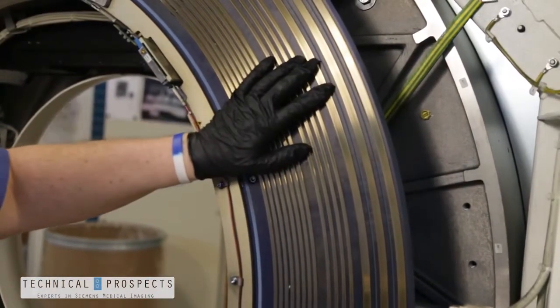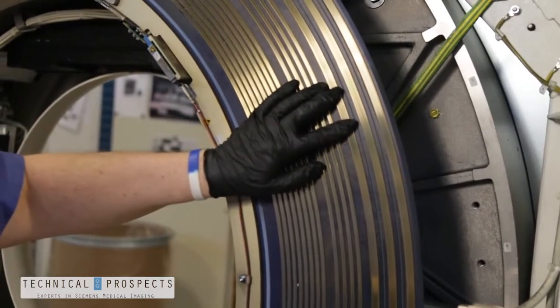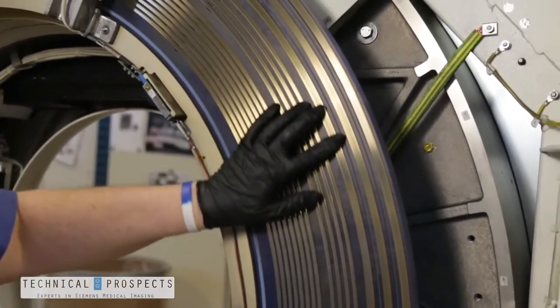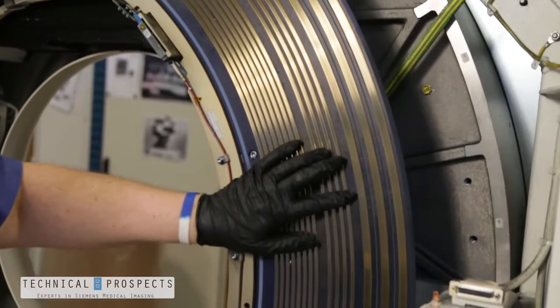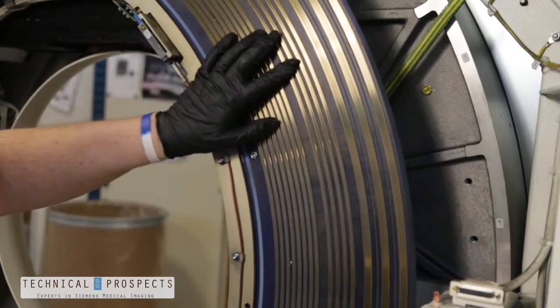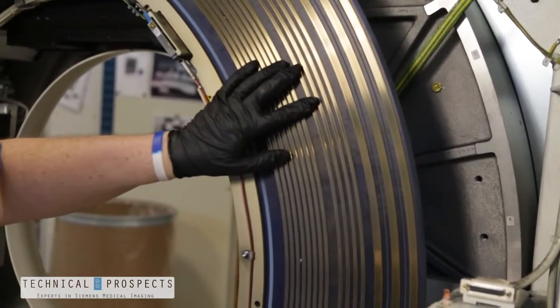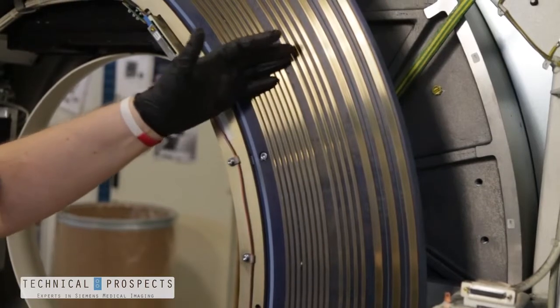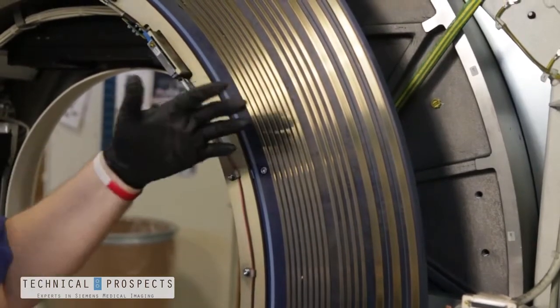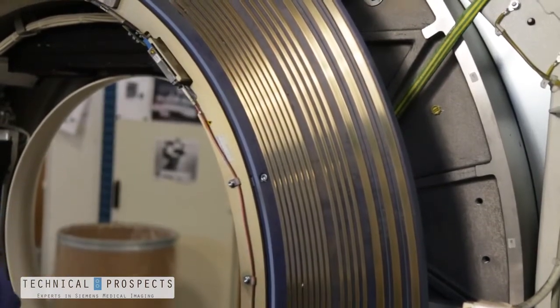Imperfections will decrease the life of your brushes by damaging the tip. If there is any burring or tracking of each and every one of these rings, you'll actually wear your contact brush faster. You'll create more dust in your environment and that overall impedes the overall function of your machine.